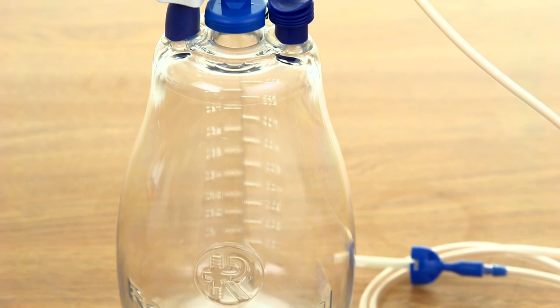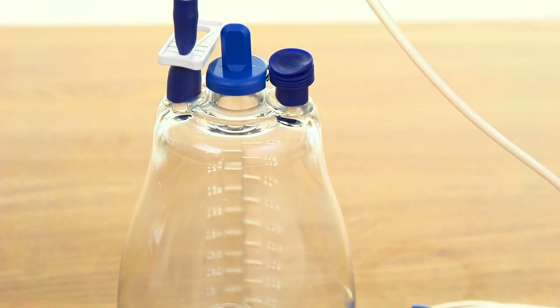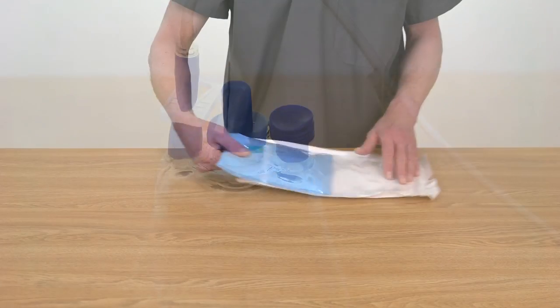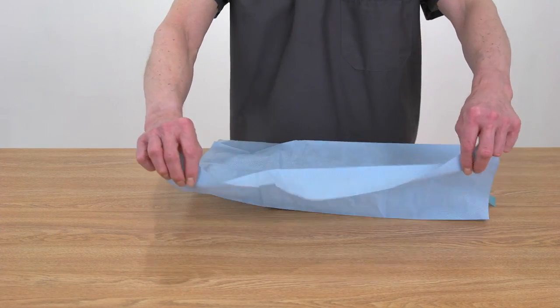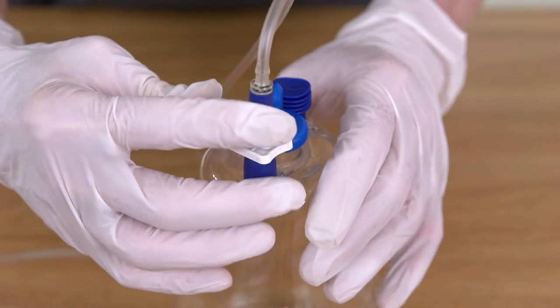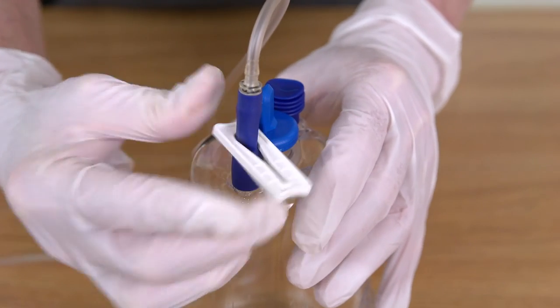Welcome to the ROCKET IPC Pleural Drainage System in-service video. The ROCKET system was designed to allow clinicians or other caregivers to safely and effectively drain fluid buildup from pleural effusions or malignant ascites.